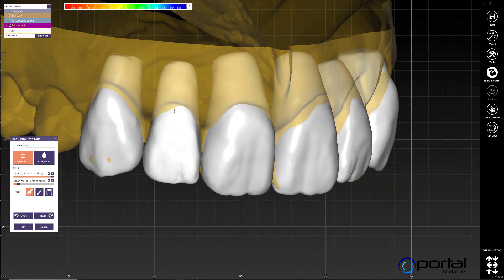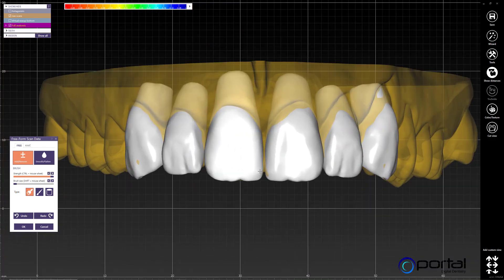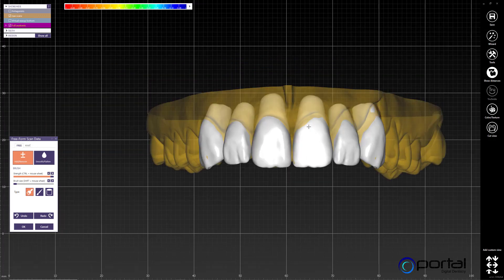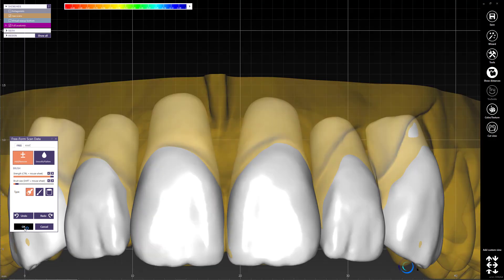Some people have asked what's the point of doing this if you can just generate a model to print without going through all this process. The limitation with that suggestion is that you cannot extract anatomies if you want to do eggshells off of this design. So if you want to provide provisionals for the doctor off your wax up, you won't be able to do that unless you go through this process. Let's pretend I've done all the cleanup needed, so we'll click OK.